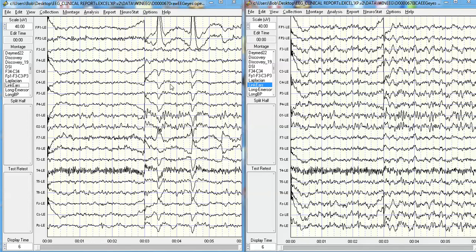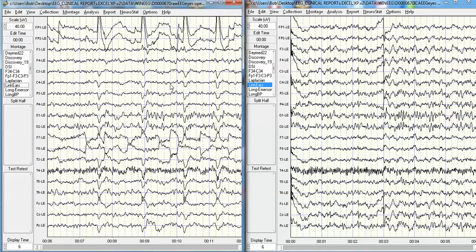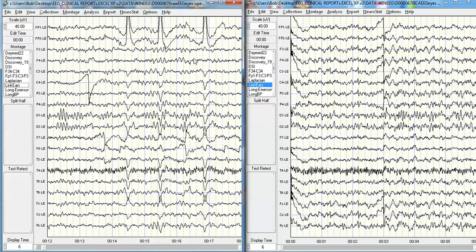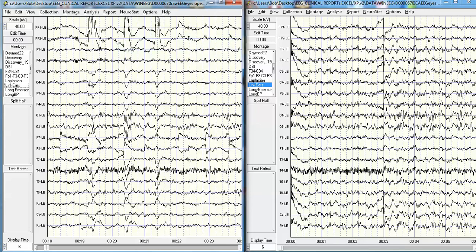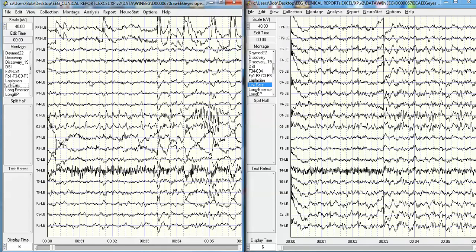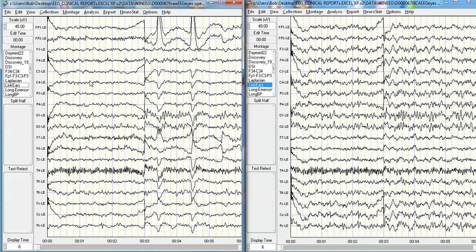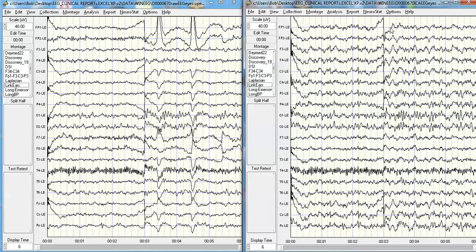On the left you can see the original EEG, and I'm going to go through it — you can clearly see eye movement artifact. There's plenty of eye movement; this is an eyes-open recording. You can also see this artifact which is not eye movement — that is an electrode pop, which is not part of the removal process. I'm scanning through it just to show where the artifact is. On the right side is the reconstructed artifact-free data. Here's an event that's present in both records, but it's not eye movement and therefore it's not removed.